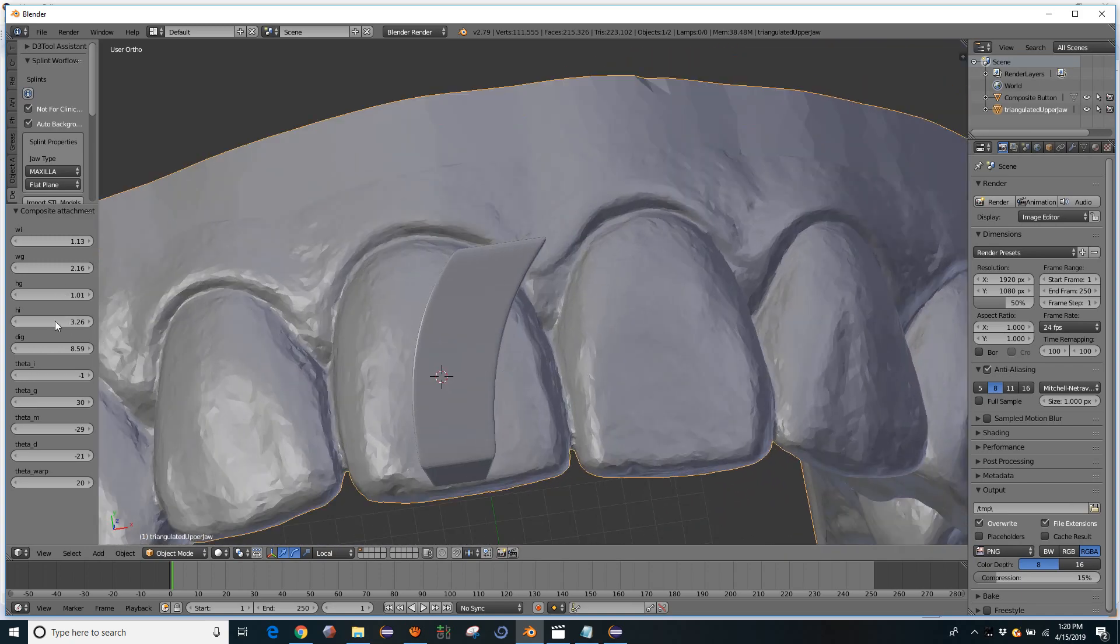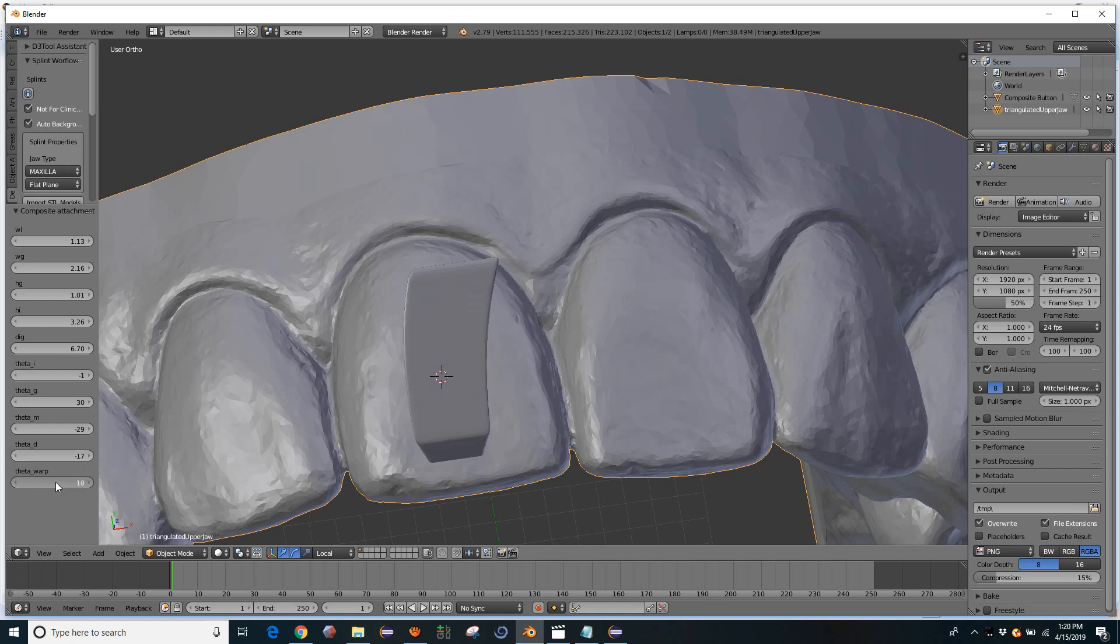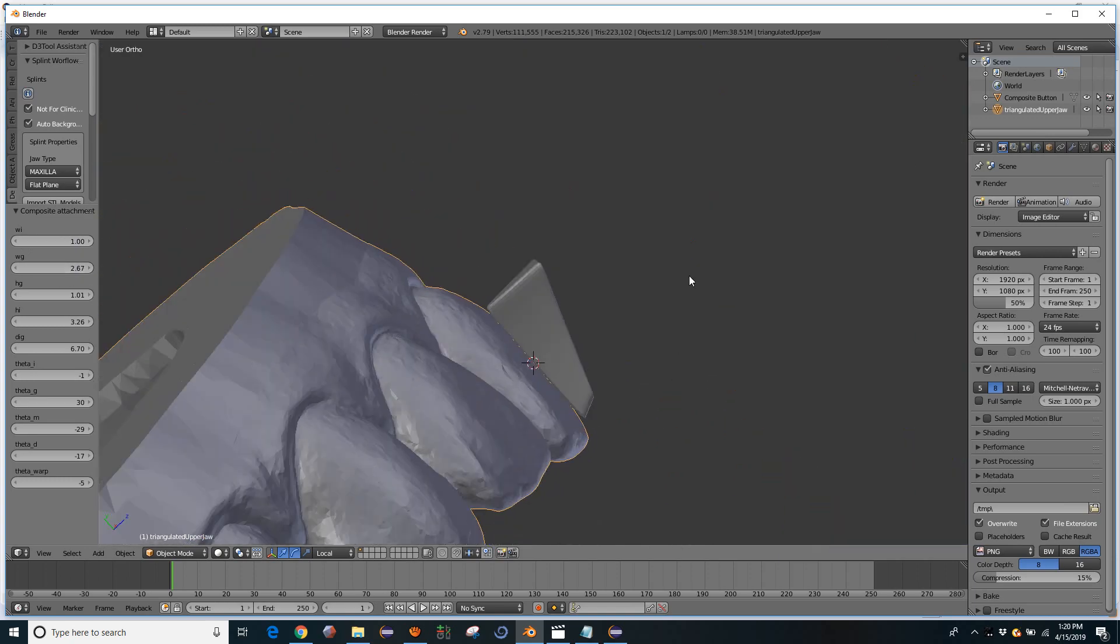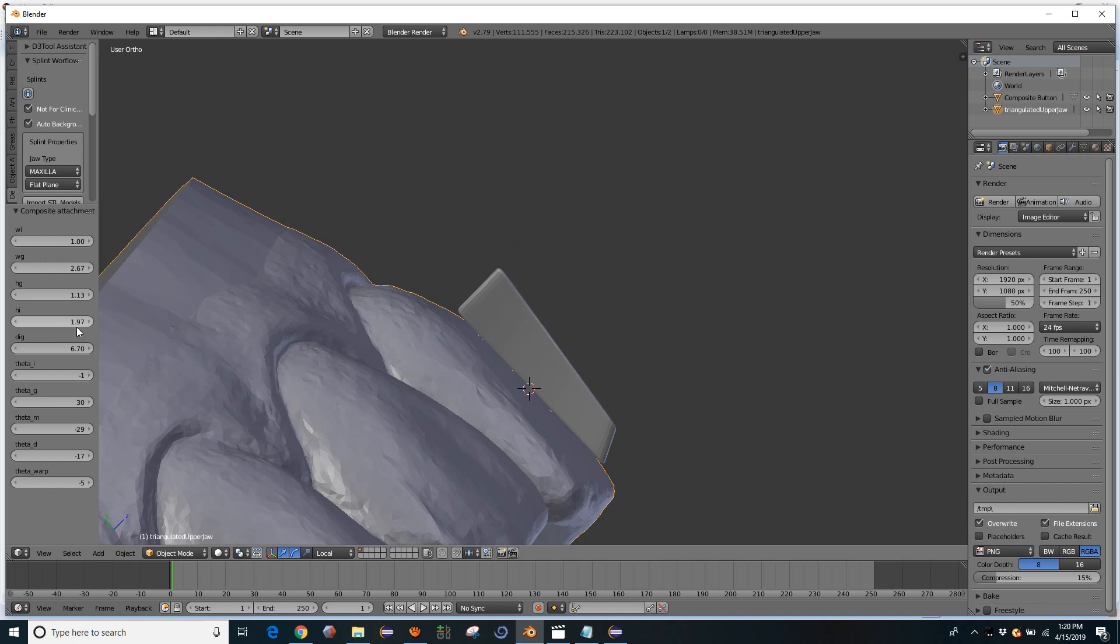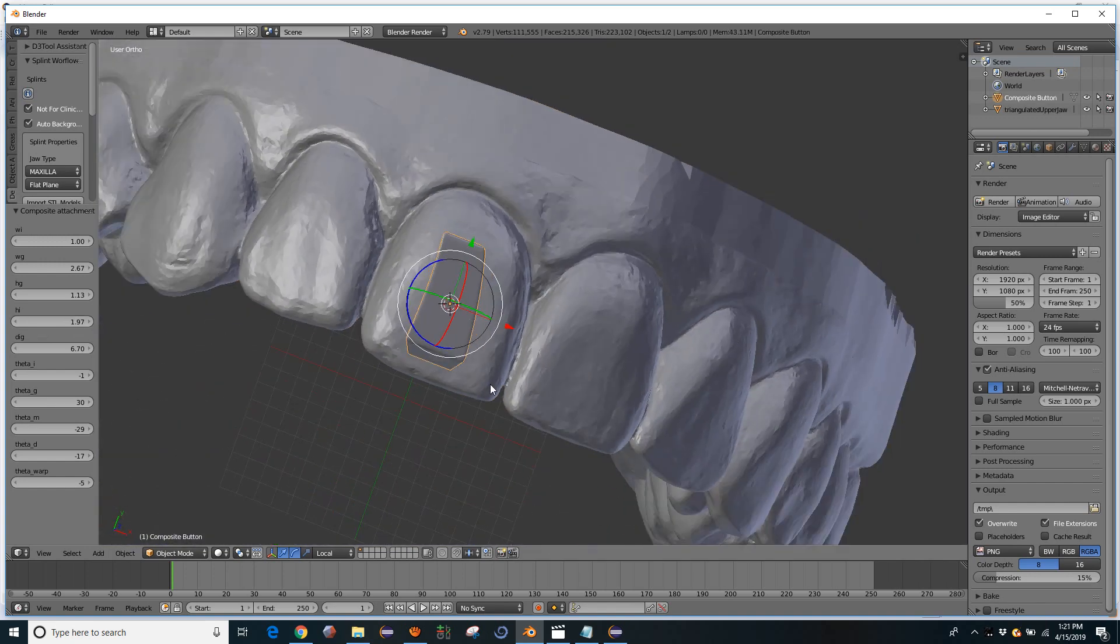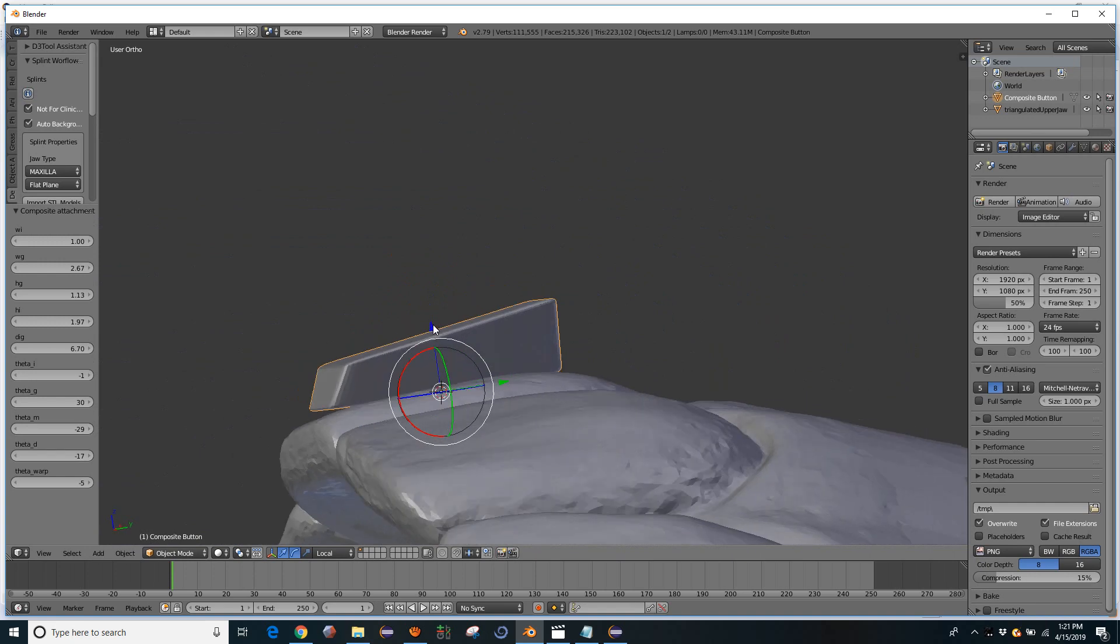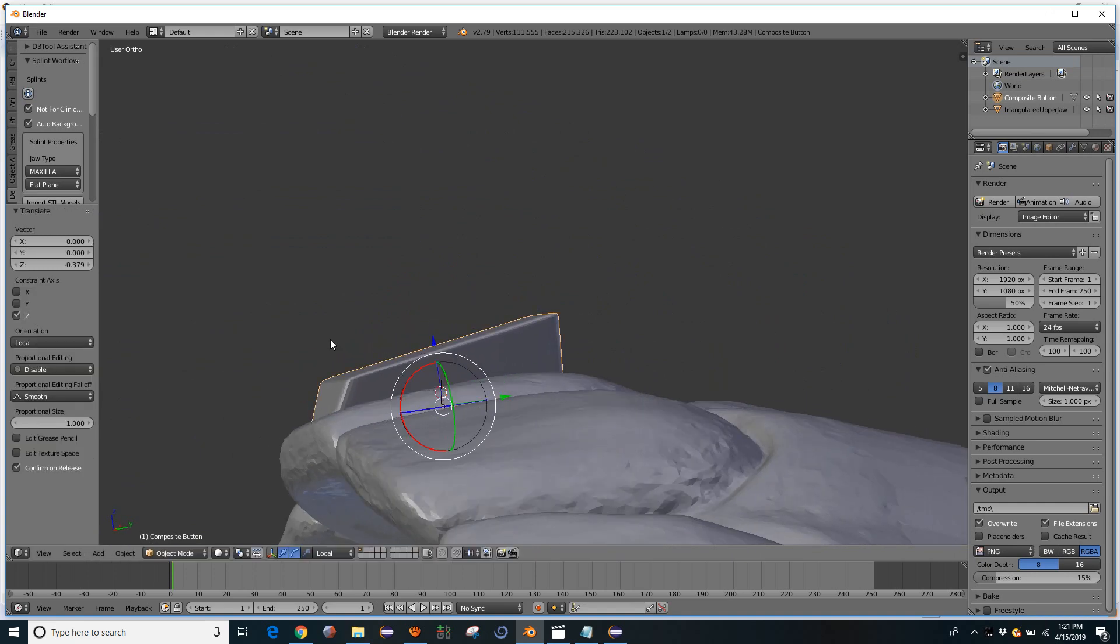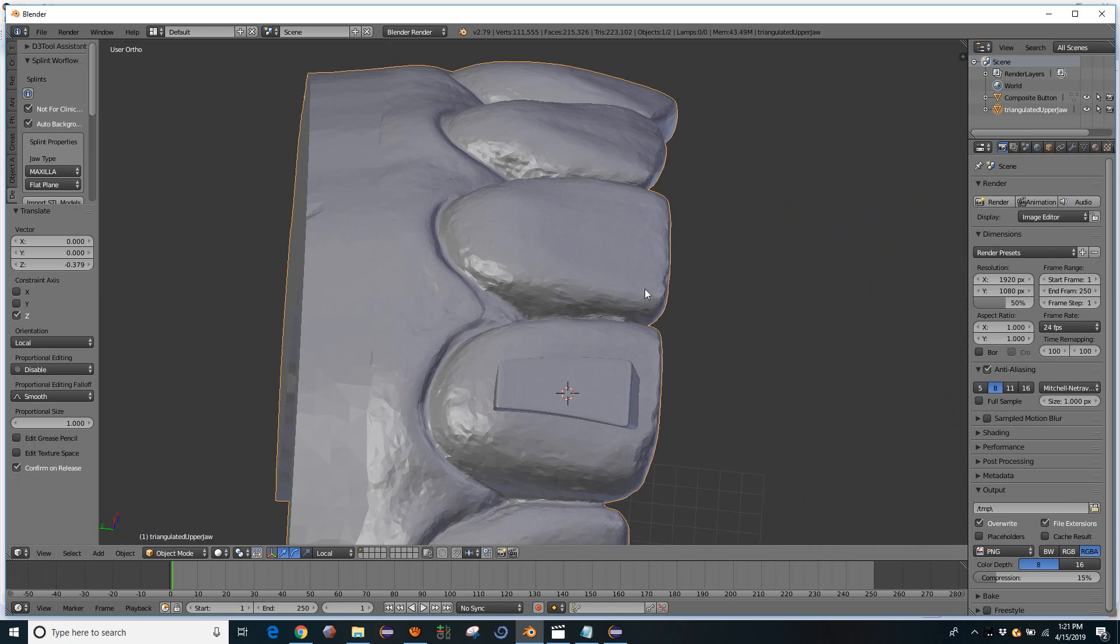Let me make it look reasonable. Okay, so now what I'm going to do is make sure this object is well intersected with the model here.